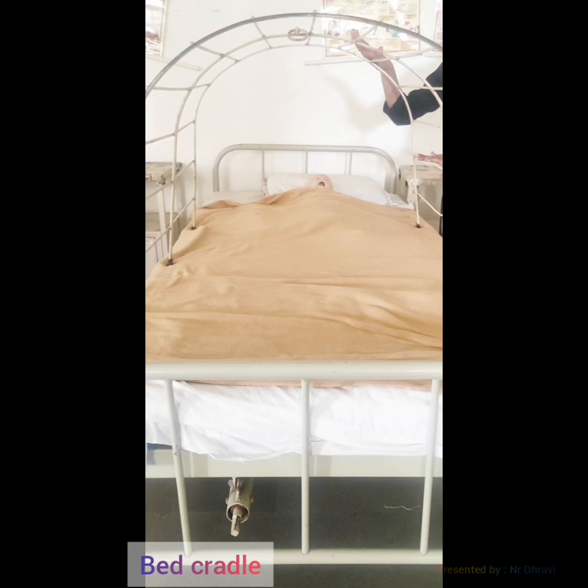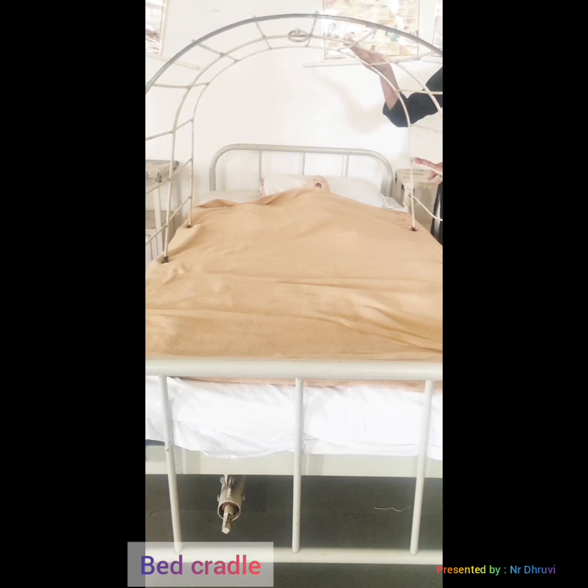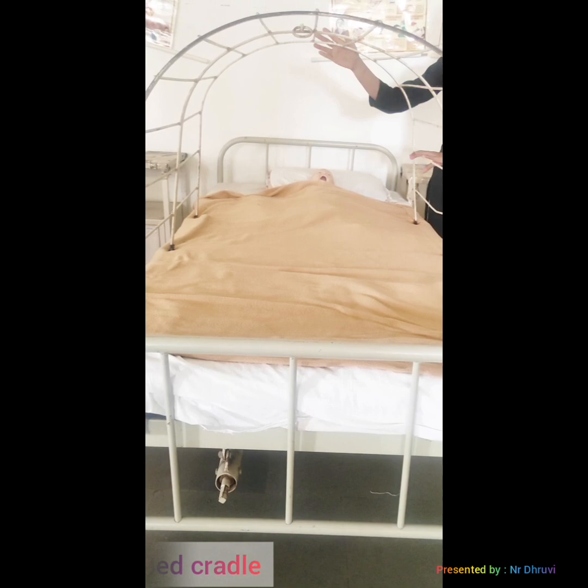The uses of the bed cradle: first, it is used to support the weight of the top bed clothing and to prevent them from coming in contact with the patient's body. Second, it is used especially for patients with burns or when a plaster cast is yet to dry, and for patients after amputation.